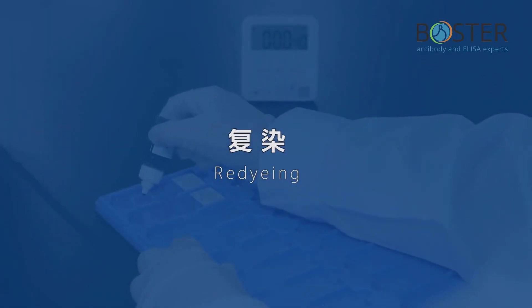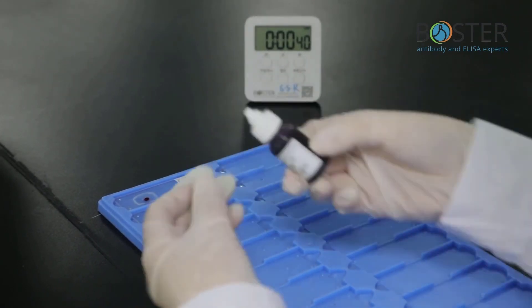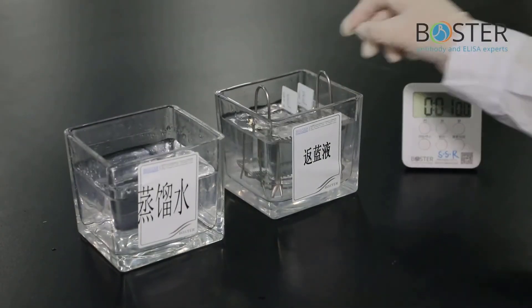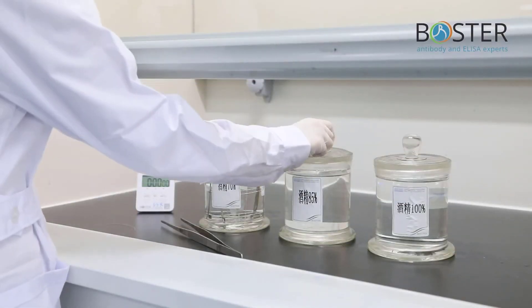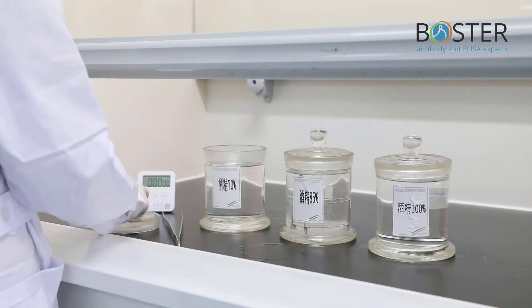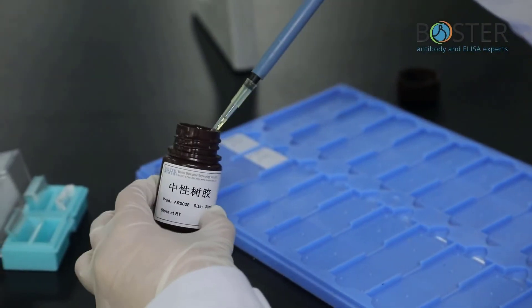Step 9: Counterstaining. This is the hematoxylin staining solution that needs to be used in the counterstaining process. Hematoxylin counterstain for 40 seconds. Use distilled water to wash. Soak in blue solution for one minute. Wash again. Final step: Cover slip. This is the mounting medium used in the mounting process. Perform 70 percent, 85 percent, and 100 percent alcohol gradient dehydration, 3 minutes per tank. Xylene clearing, 3 cylinders, 2 minutes per cylinder. After drying, seal the film with neutral resin.